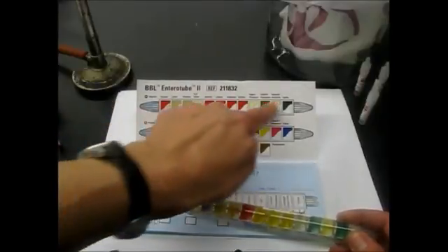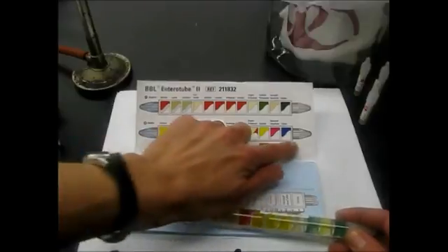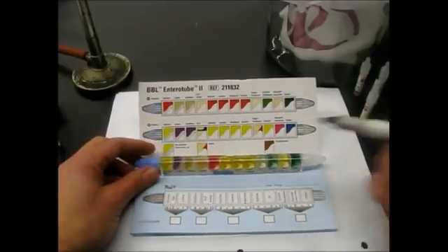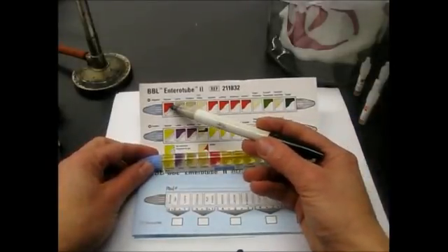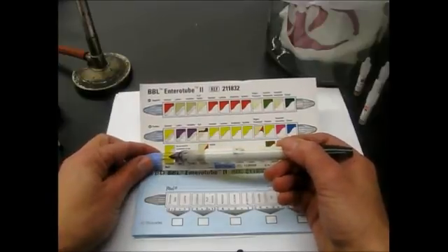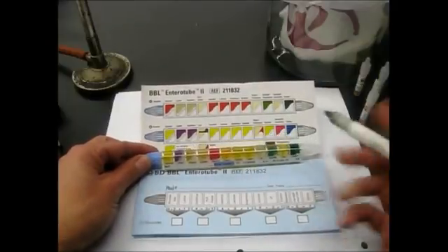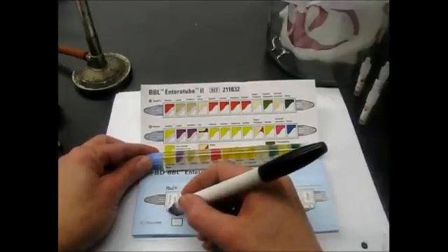and the top shows an uninoculated negative result, and the bottom shows a positive result. So all we're going to do is compare our tube to this results pad. If you look at the first one, the glucose compartment, you can see that the uninoculated is negative. It's a red color, and the positive result would be yellow, and ours did turn yellow. So any positive result, you're going to take on this blue side of the results pad, and just below the glucose, we're going to circle the number.